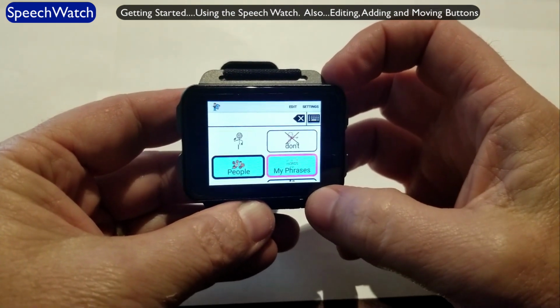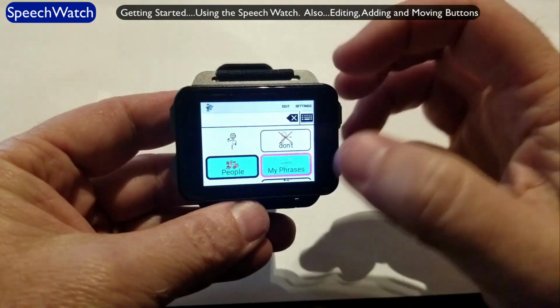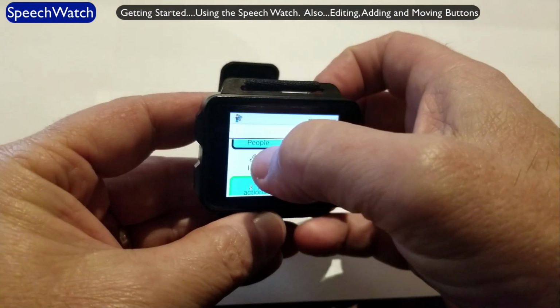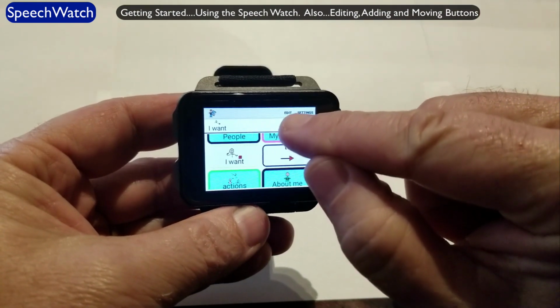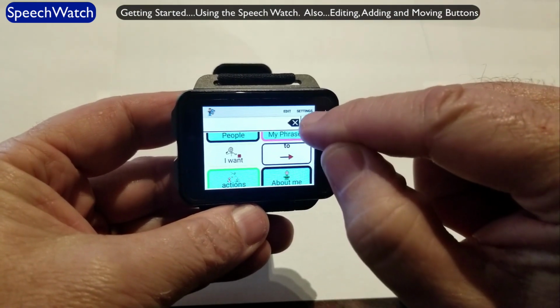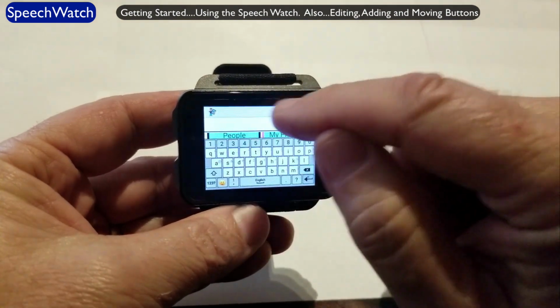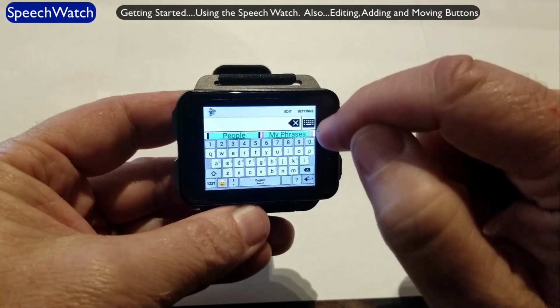Okay, so if I want to use it to speak, let's first look at the top here. I have a message bar, we call it, across the top. If I touch a word or a button I want, it goes in there. There's a backspace button here too, so I can delete that. There's also a keyboard button. I can bring up my keyboard and type directly into this to do text to speech, or to add text to symbols that I've chosen.